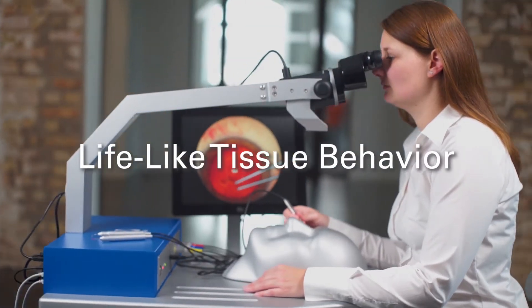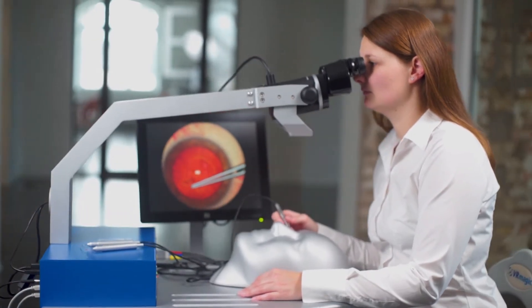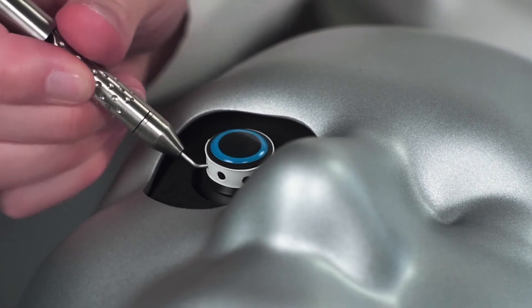Looking through an OR microscope, trainees experience their interaction with tissue and intraocular structures simulated in real time.